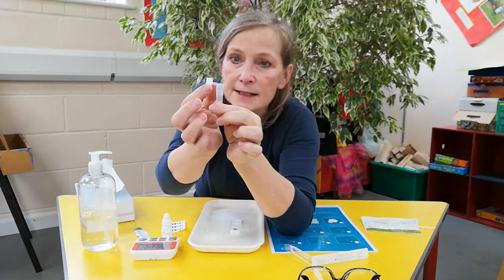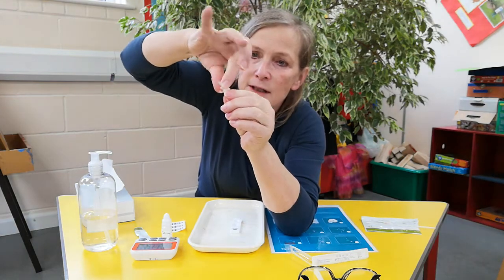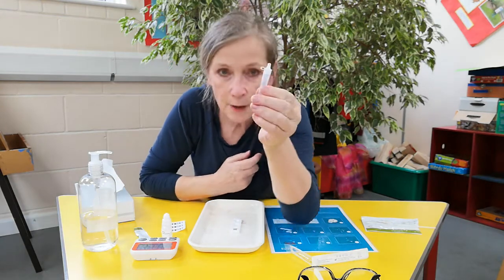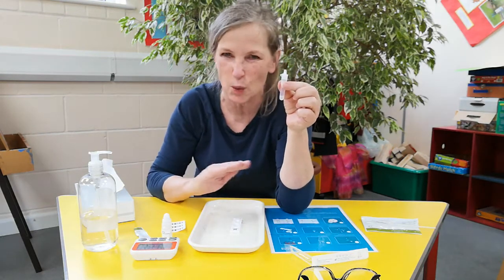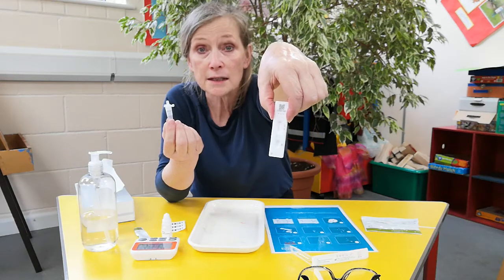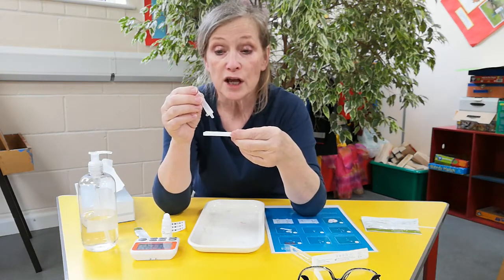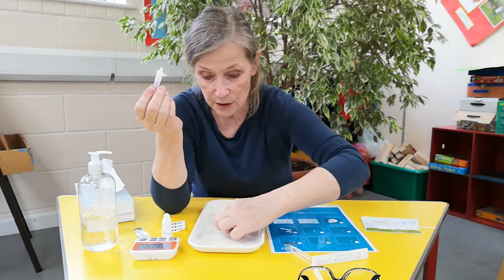This is where I think this is very clever — this little lid. Try not to touch the point there; swing it round and push it firmly in. Now we've transformed it into a pipette. Make sure you haven't got any bubbles in — you don't want bubbles because you may have to redo the test. What you're going to do is gently tip it upside down. Try not to touch the actual little portal — slightly above it — gently squeeze two drops in: one, two. Now you set your timer.